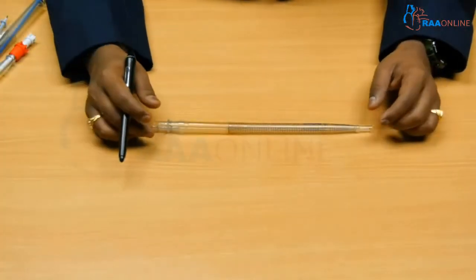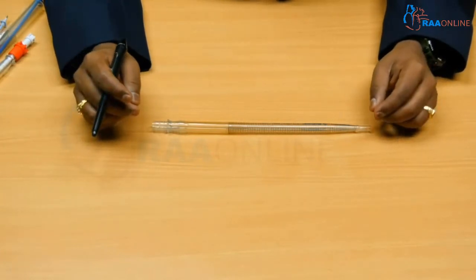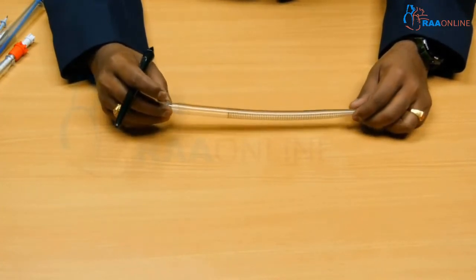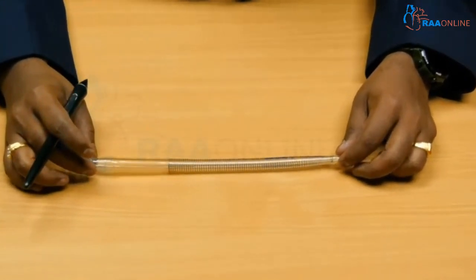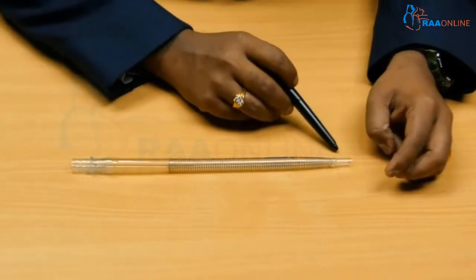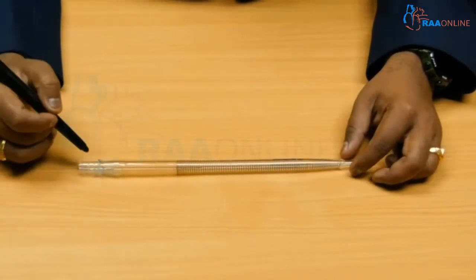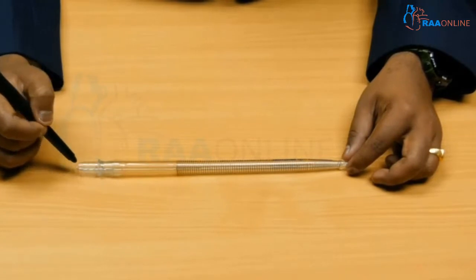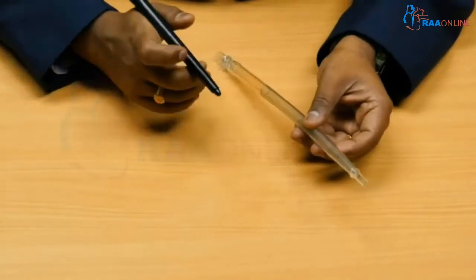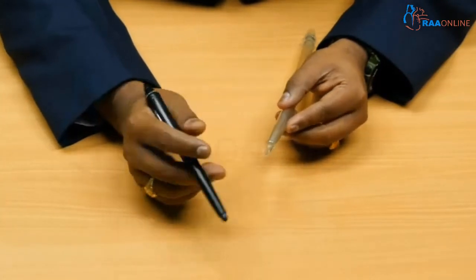Today we are going to discuss the different cannulas used during cardiopulmonary bypass. I have a set of common cannulas here. The first is the aortic cannula in front of you. This is a two-piece aortic cannula with a straight aortic cannula and a connector, so that it can be used directly with a 3/8 inch tubing connected to it. The tip of the cannula is oval in shape and cut sharp.